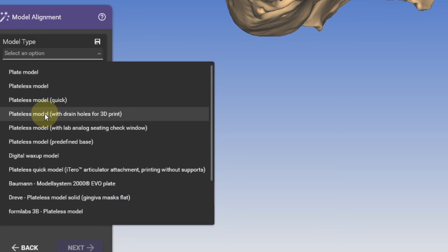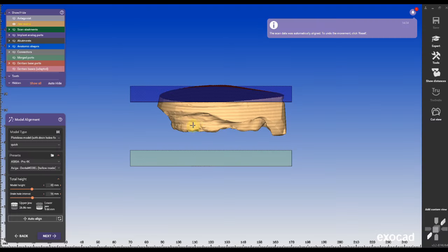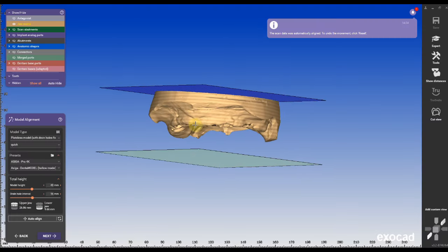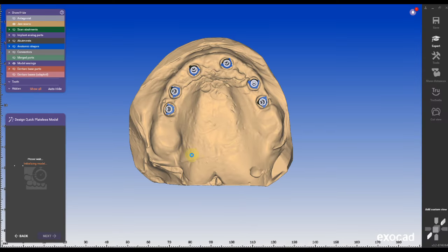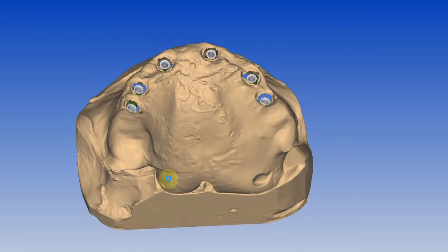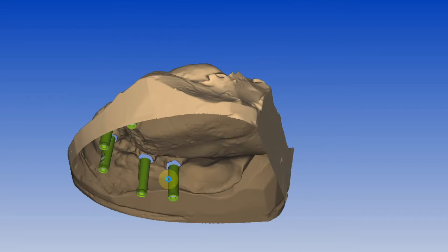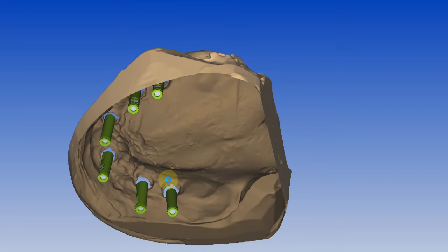Under model type, you can choose drain holes for implant analogs or you can even add a soft tissue. I'm explaining model design in all of my other videos, so feel free to watch those.